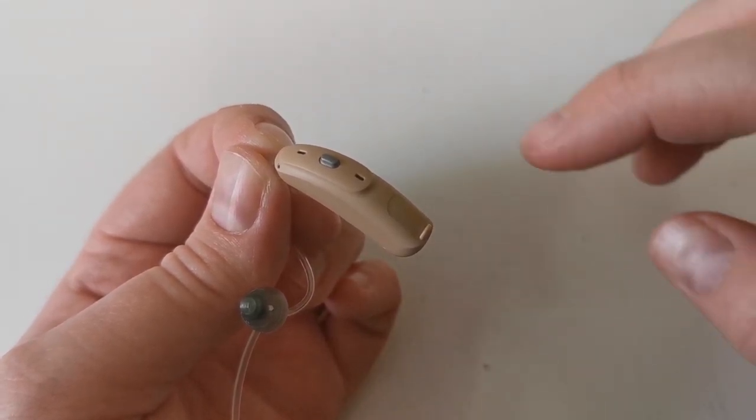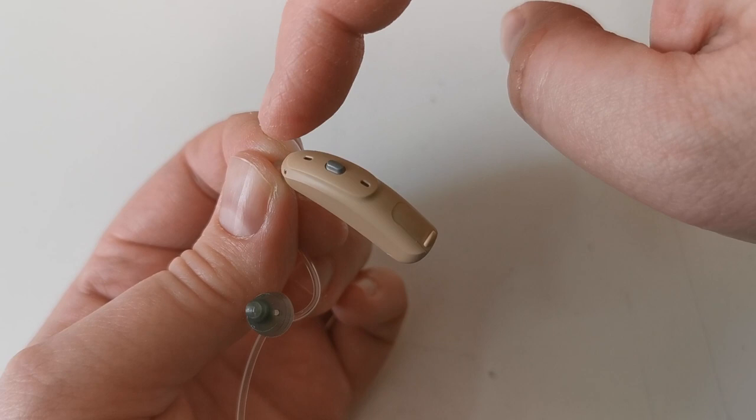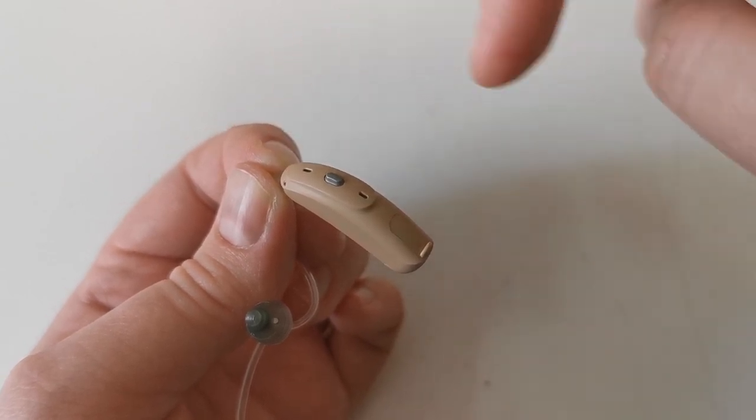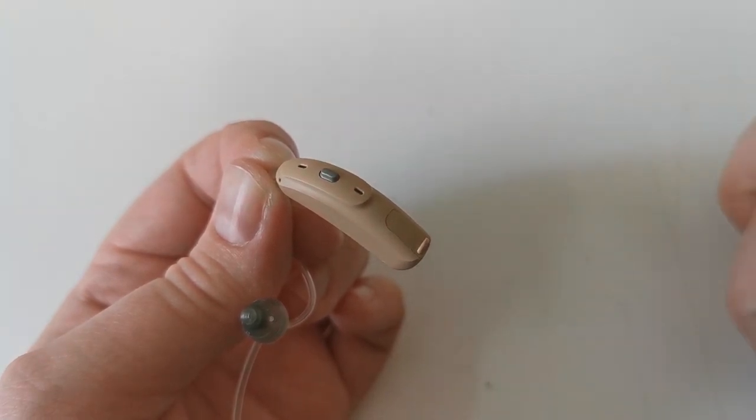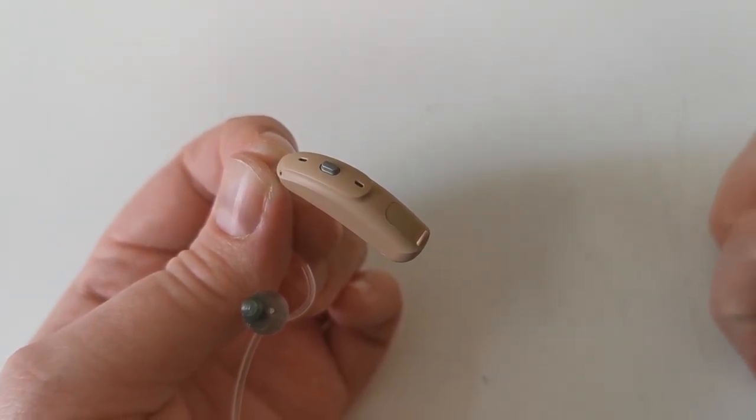There are microphones located in two locations. Between the microphones there is the program button. We may add programs depending on your needs.